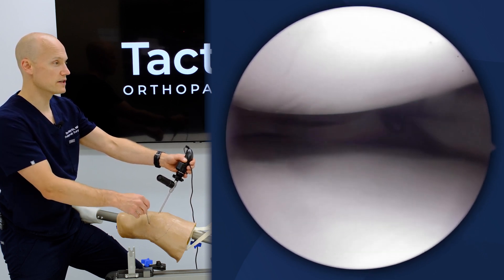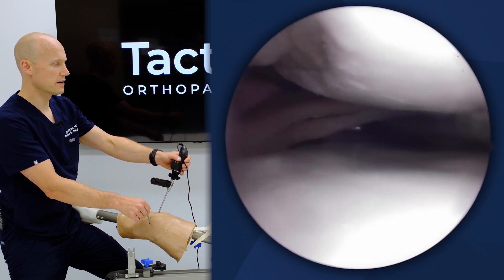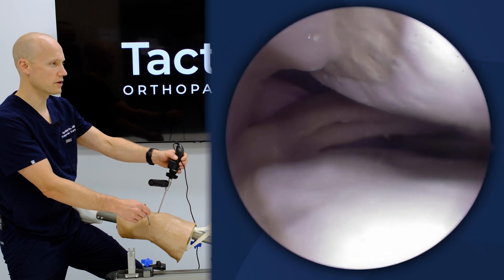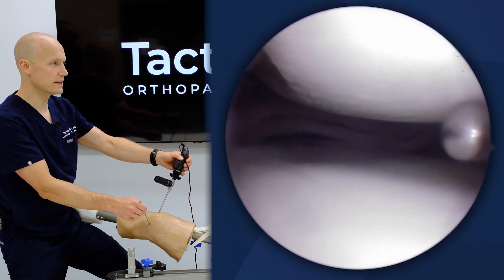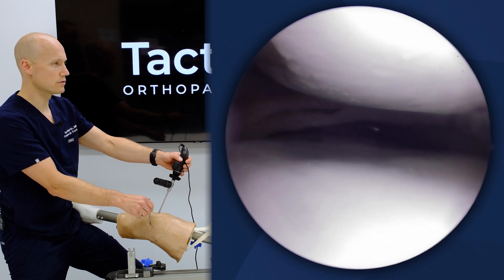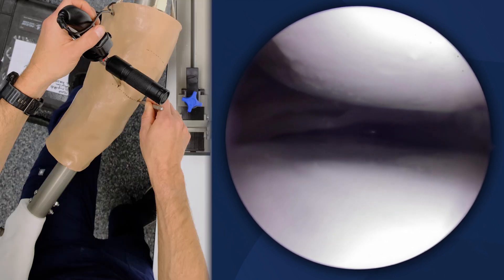I can increase this by pie-crusting, but I think there's also a certain aspect of teaching those less experienced in arthroscopy certain techniques to gain access to the medial compartment without directly going to the pie-crusting technique first.